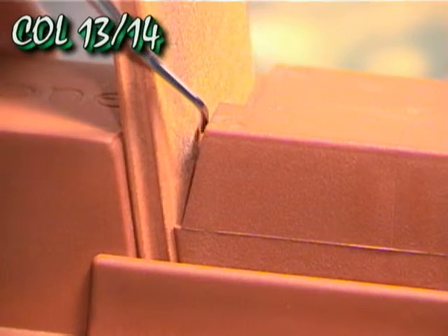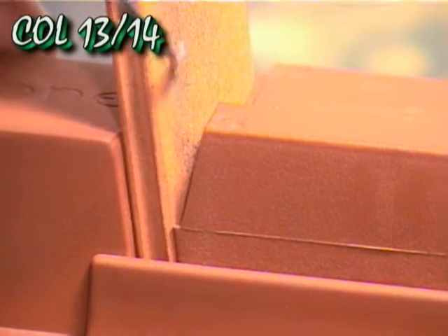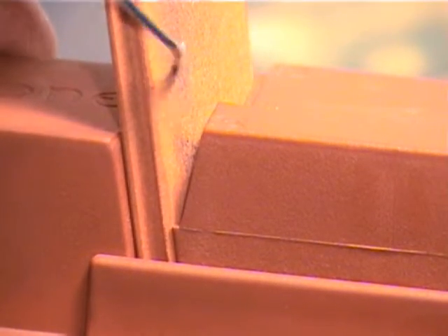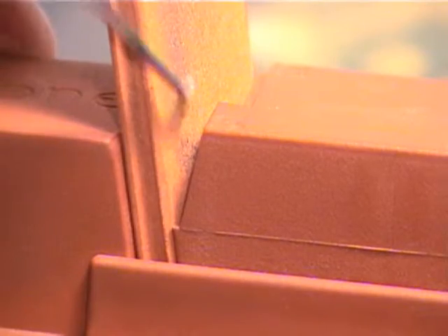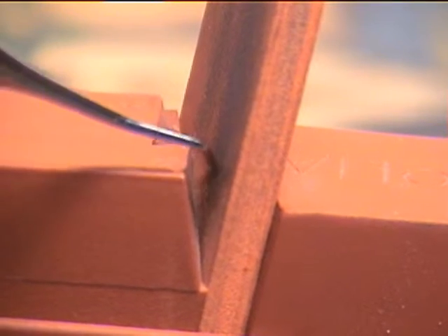The Columbia 1314 illustrates the sharpening of a universal curette. It is sharpened similar to the 204S, with its handle positioned behind the Hone. Use a short push and pull stroke and rock the instrument back and forth from heel to toe.